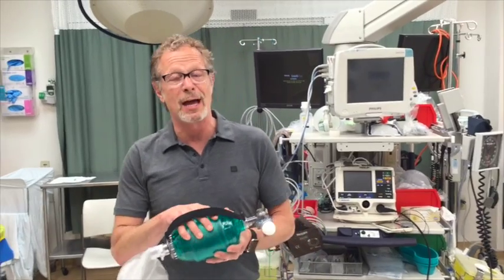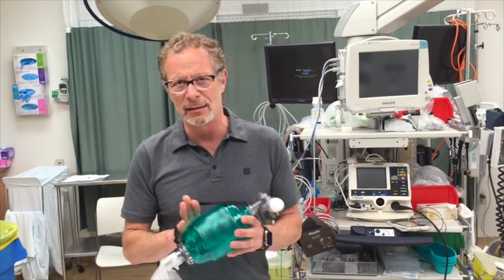So for a spontaneously breathing patient, the only way to deliver close to the intended concentration of oxygen is by having an attached PEEP valve. Most of these BVMs will deliver adequate oxygen if you're matching the patient's breath and assisting them, but for oxygenation in the spontaneously breathing patient, you need to know your equipment and recognize that they're not all the same.